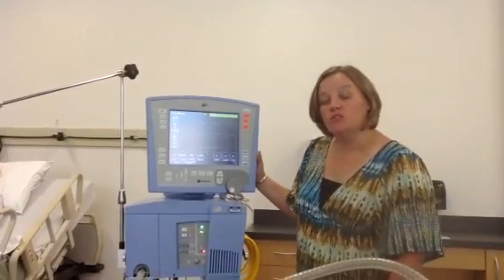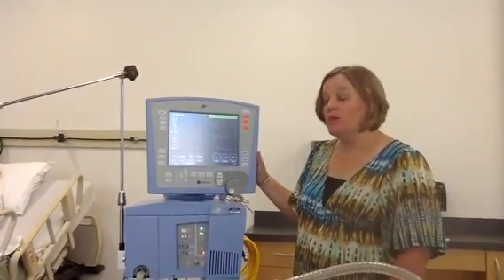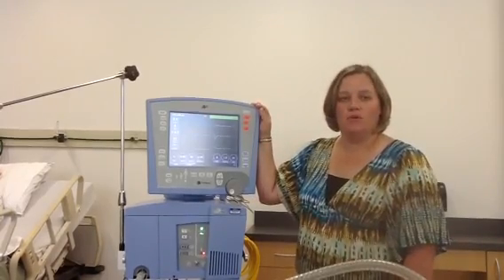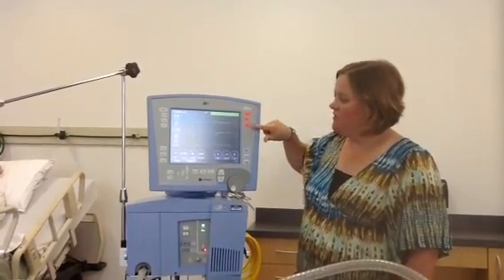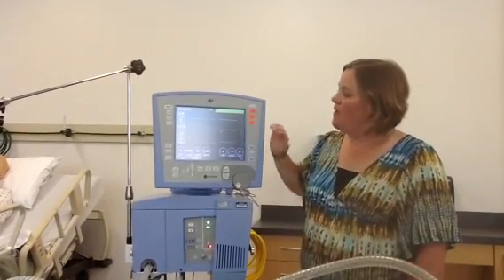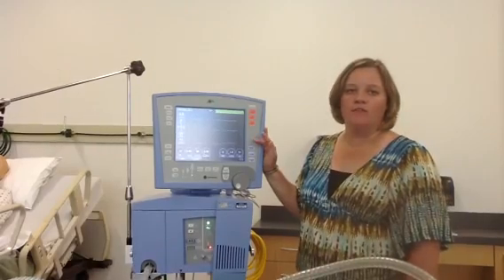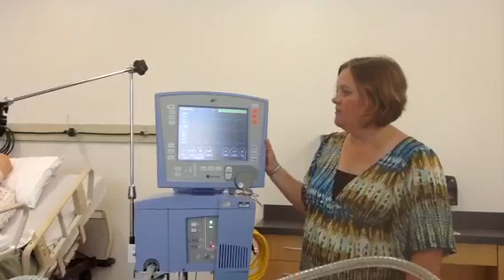Good afternoon, my name is Crystal Brenner and I'm going to be showing you the AVEA ventilator. Basically what I'm going to walk you through is all of these knobs on the side — or soft keys as they're called — and what happens whenever you touch them, what they do. So just a basic introduction to the AVEA ventilator.